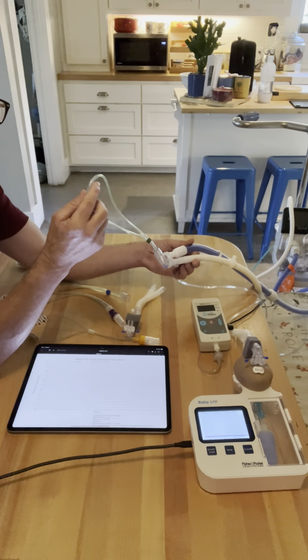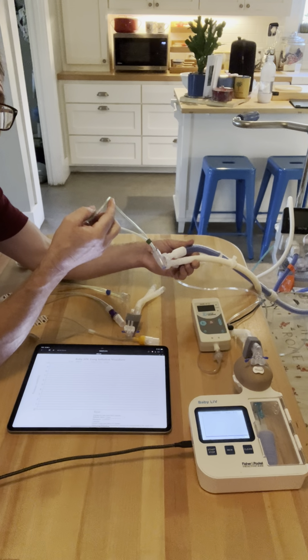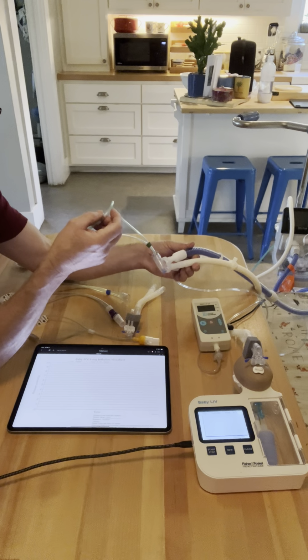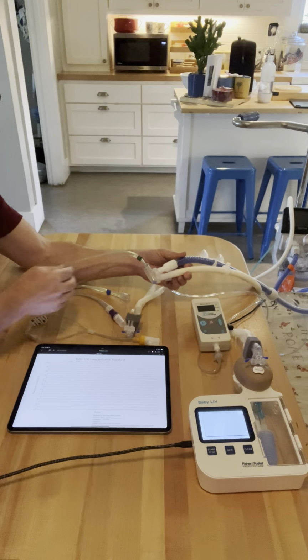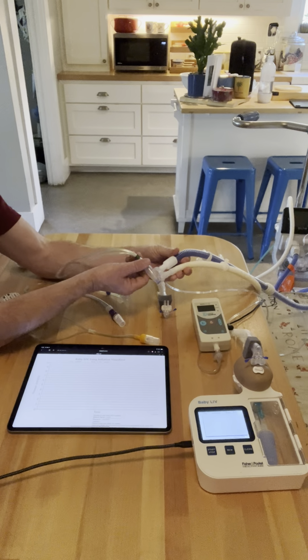So if they exhale against this, does that air go back up through the prongs and back in the tubing, and then they're rebreathing CO2? Or do they have to exhale around the prongs, which is why they say 60-80% occlusion? Or do they end up exhaling out of their mouth? So all of those are potential problems on what impact that could have on the CPAP.